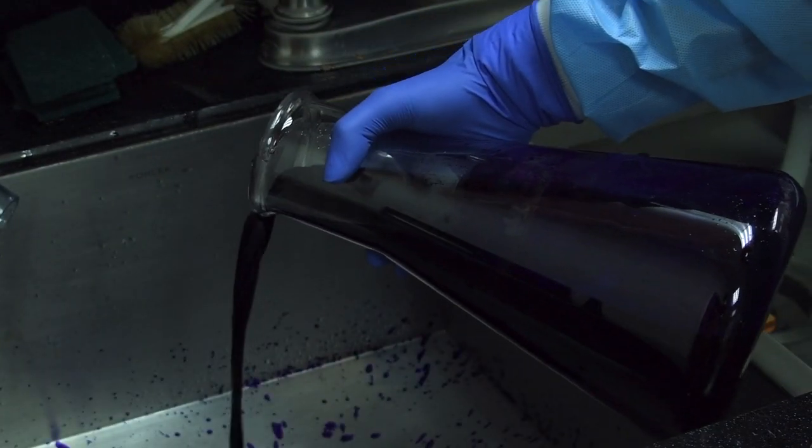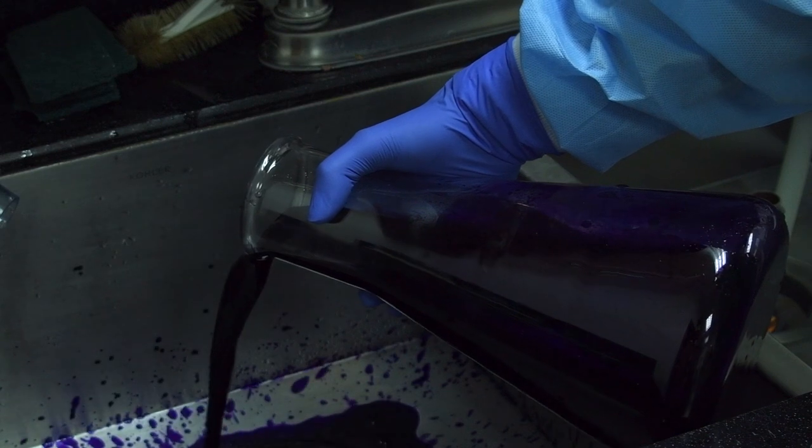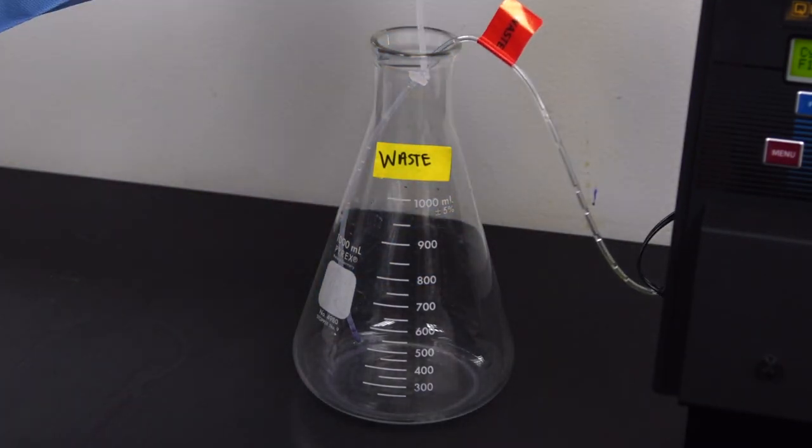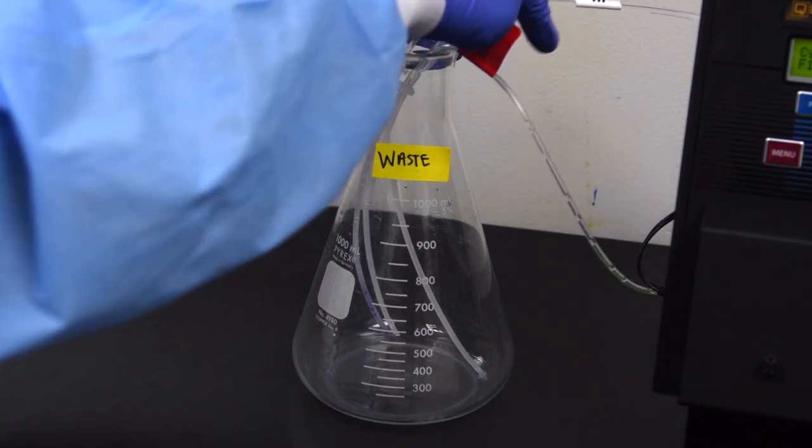Empty the waste container of any fluids from primes or stain procedures. Remove the three reagent cannulas from the reagent bottles and place them into the empty waste container.